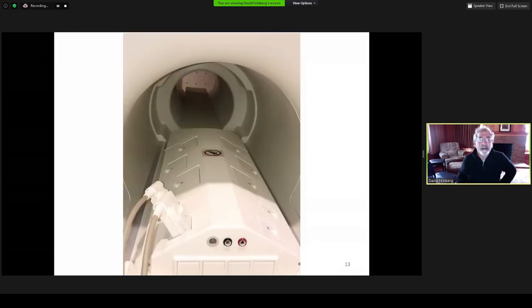I'm going to show you the scanner now integrated at Berkeley, where it's delayed due to COVID, but the German scientists working through web-based conferences with the U.S. division, we've made progress. You can see the gradient coil in the deeper center of the bore of the magnet. The gradient coil itself is 44 centimeters but has acoustic insulation and the bore liner narrowing into 39 centimeters. You can see the shoulder cutouts here, but the main entry point remains 60 centimeters. There's not any significant increased claustrophobia effect because your head is in the coil, the head coil.